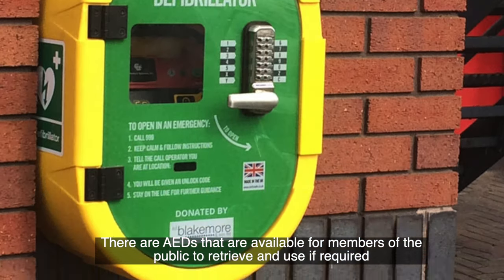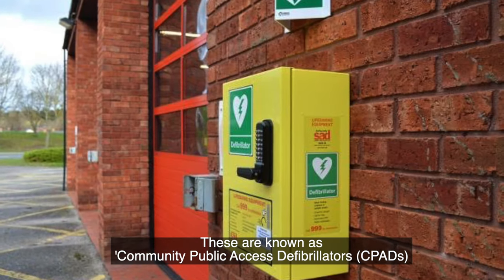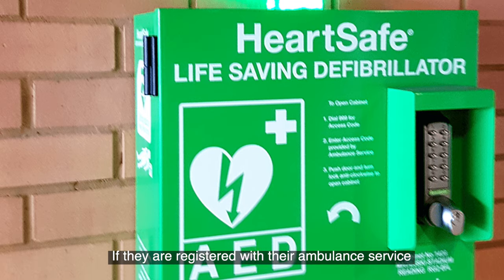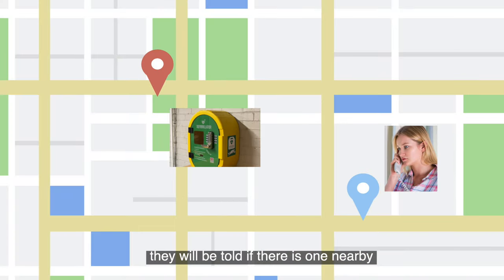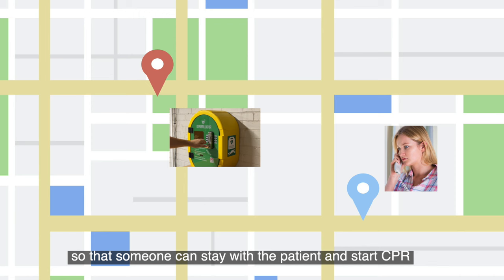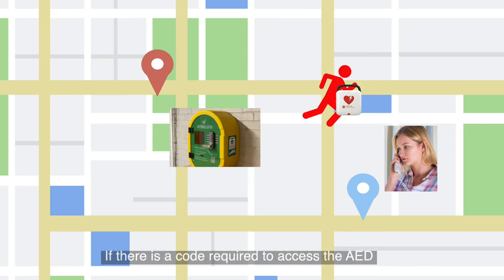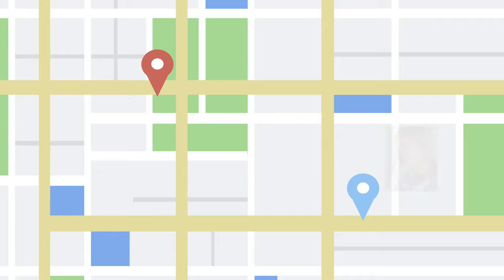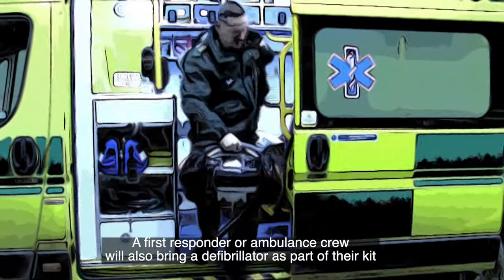There are AEDs available for members of the public to retrieve and use if required. These are known as community public access defibrillators. If they are registered with their ambulance service, when someone calls an ambulance for someone who may need a defibrillator, they will be told if there is one nearby. Usually they will be advised to send someone else to retrieve the AED so that someone can stay with the patient and start CPR. If there is a code required to access the AED, the ambulance service should have and provide this information. A first responder or ambulance crew will also bring a defibrillator as part of their kit.